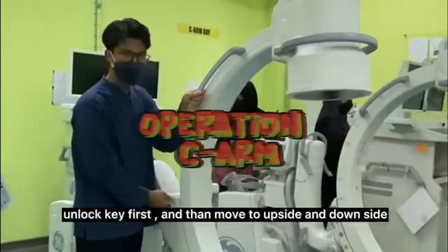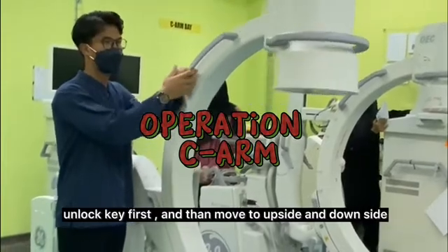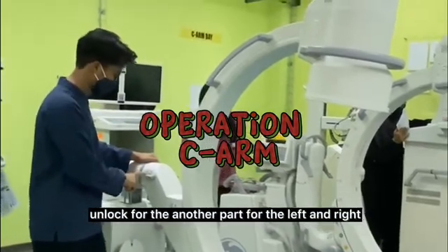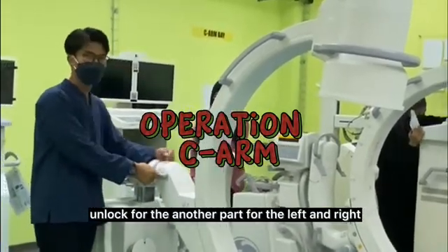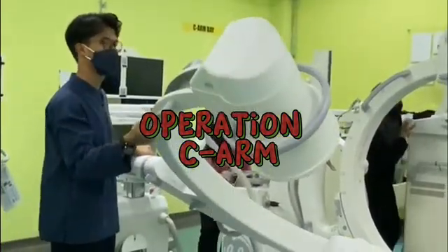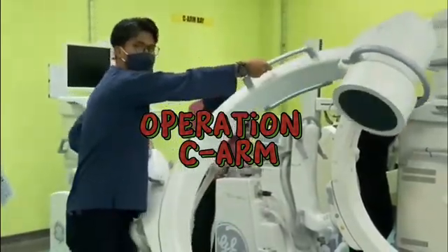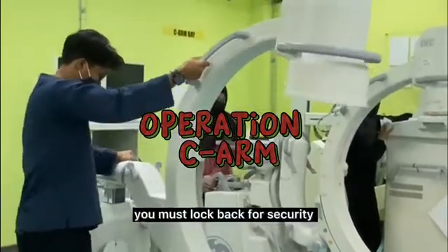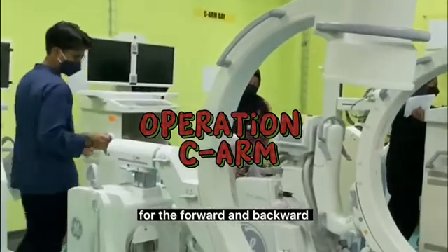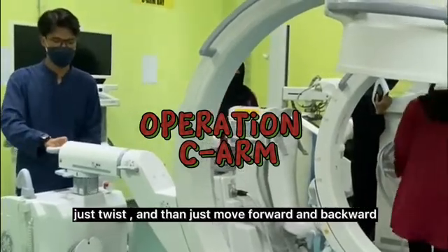For this part, I unlock the key first and then move to upside and downside. Then unlock back and lock again, and another part for the left and the right. Just move it and then you must lock back for security. And for the forward and backward, just twist and then just move forward and backward.